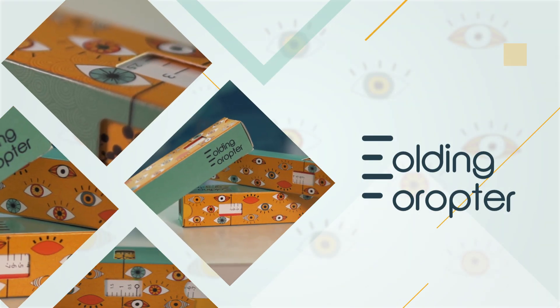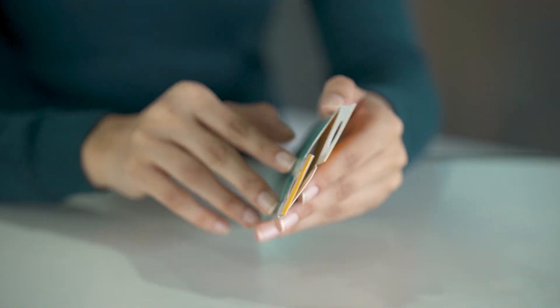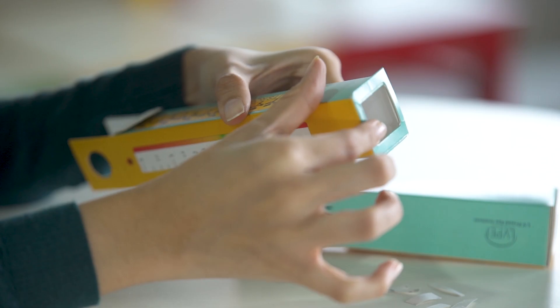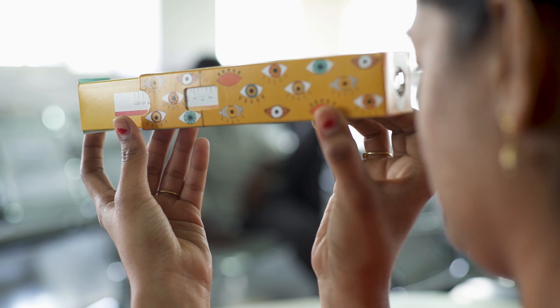The folding phoropter is just that — paper saving vision. The folding phoropter is a simple paper cutout that folds around two lenses, forming two tubes that slide in and out of each other. The user then looks through the device.